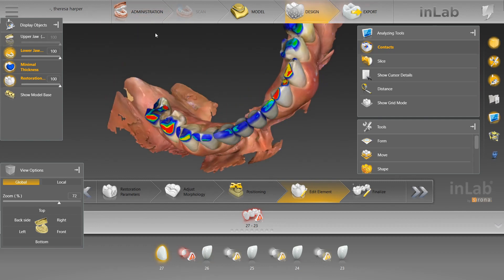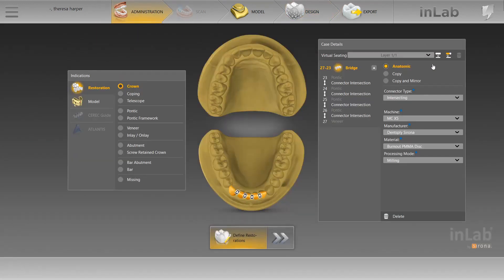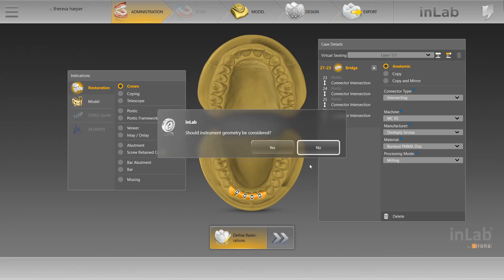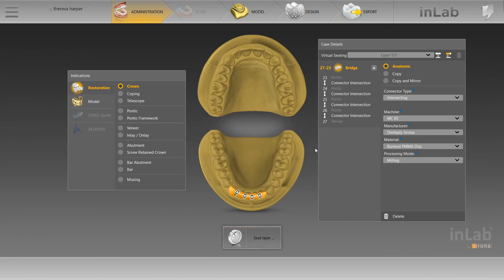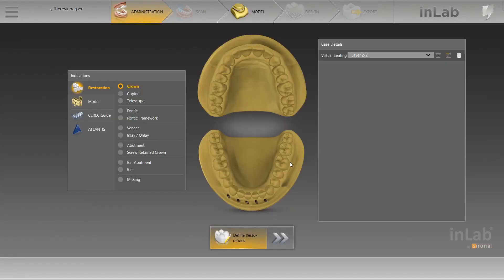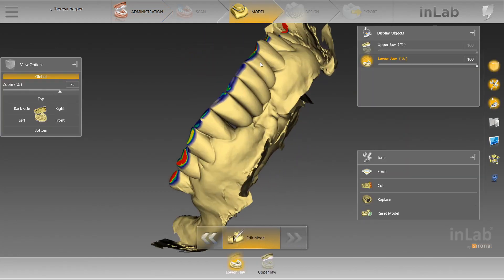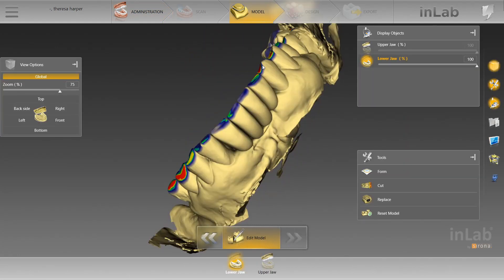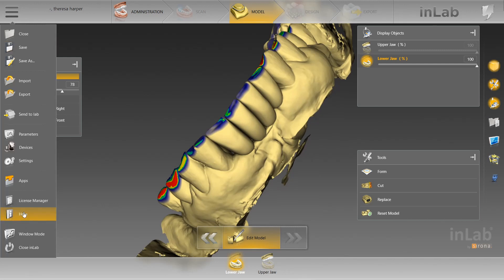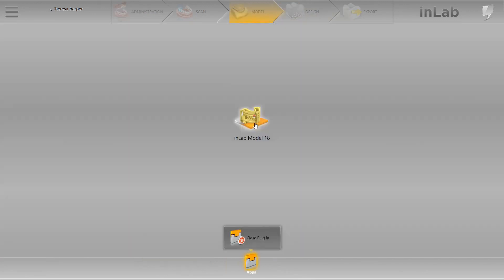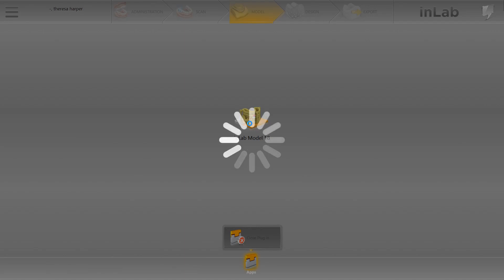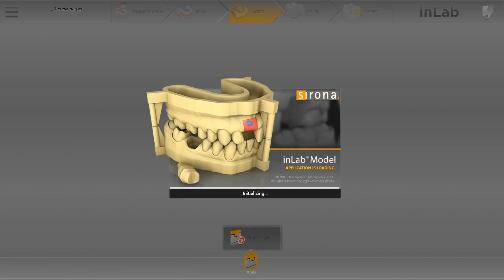So what you're going to do, as you normally would, is you're going to go into administration, you're going to insert all, you're going to click no. You don't want to consider instrument geometry. So now they're virtually seated. You've got your STL file, looks all sexy and nice. You're going to go to your apps, you're going to go to your in-lab module, in-lab model module. This is going to be a good video, I think.